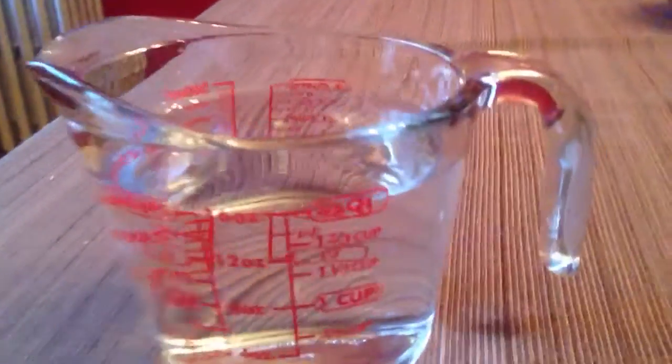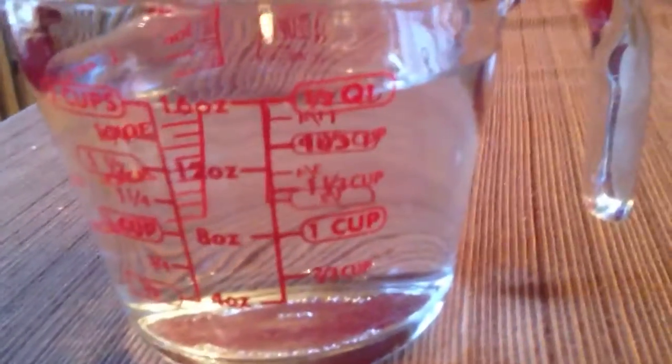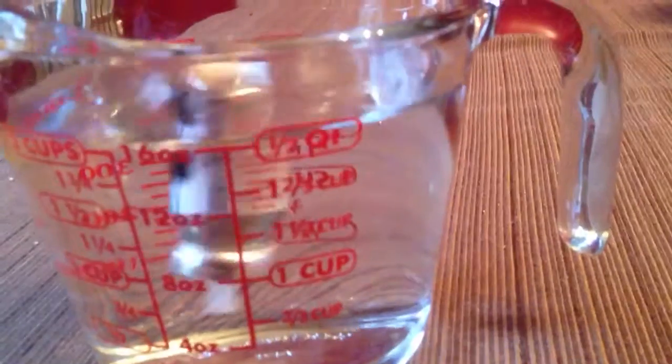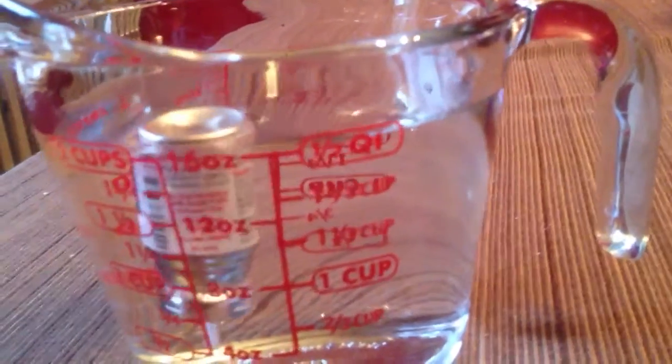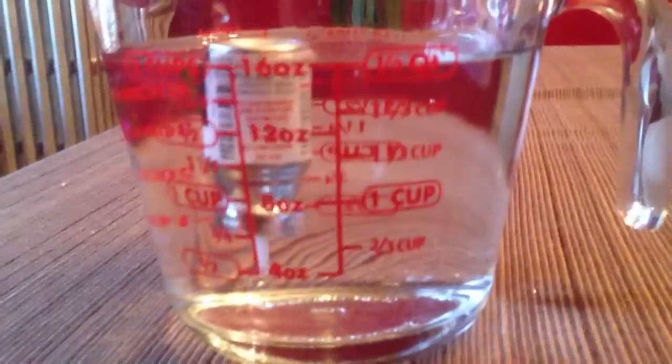Now I have my brand new backup canister that I have not used, and it floats straight up and down as well.